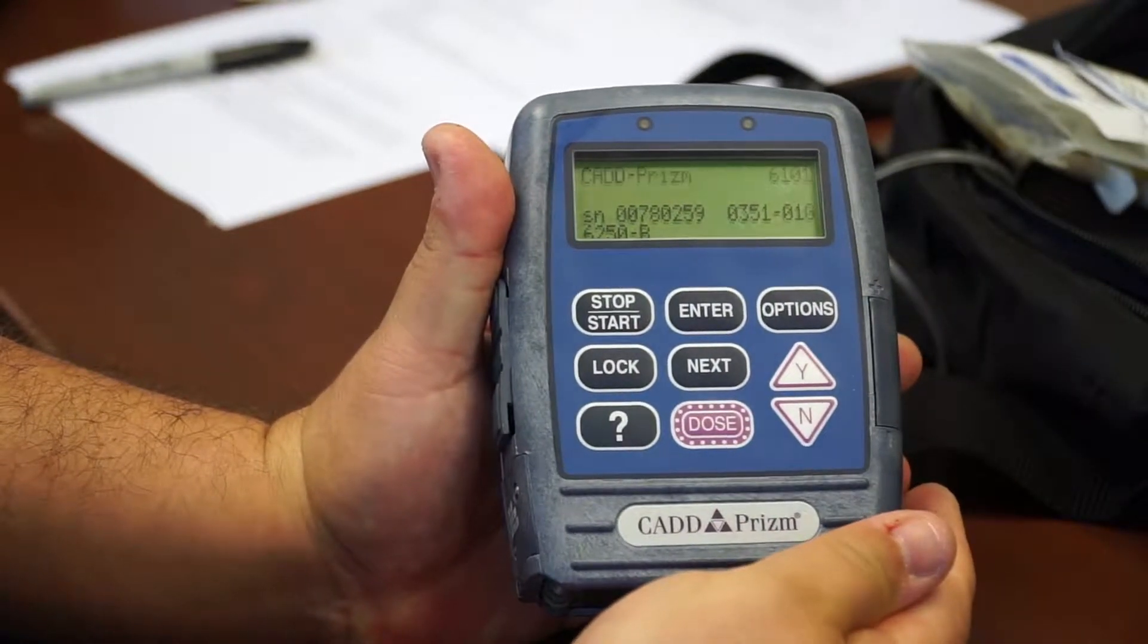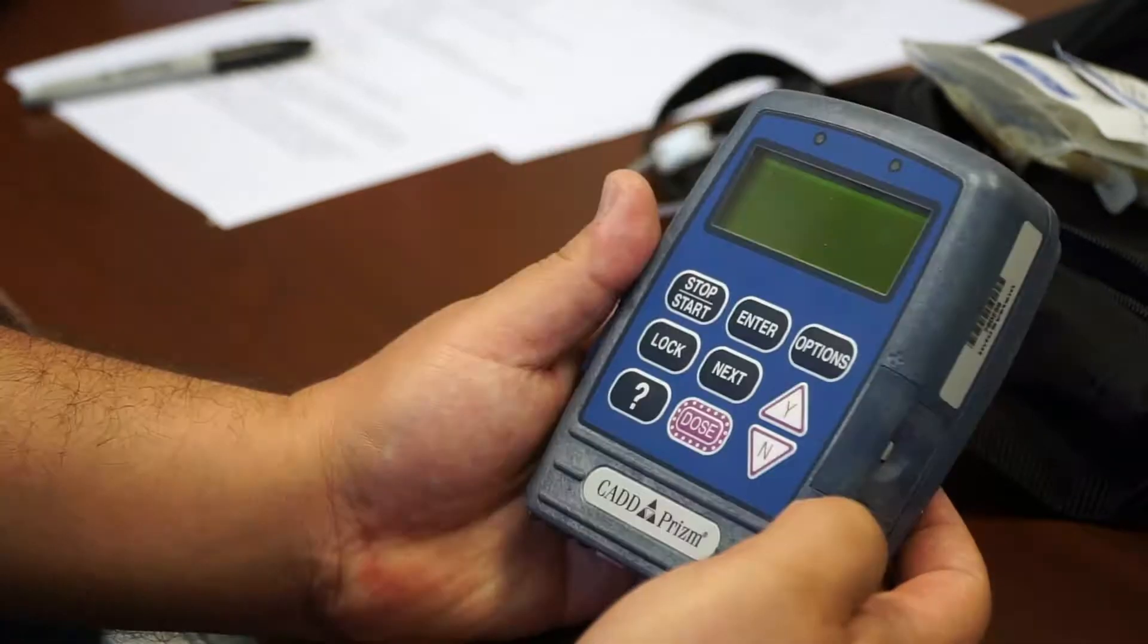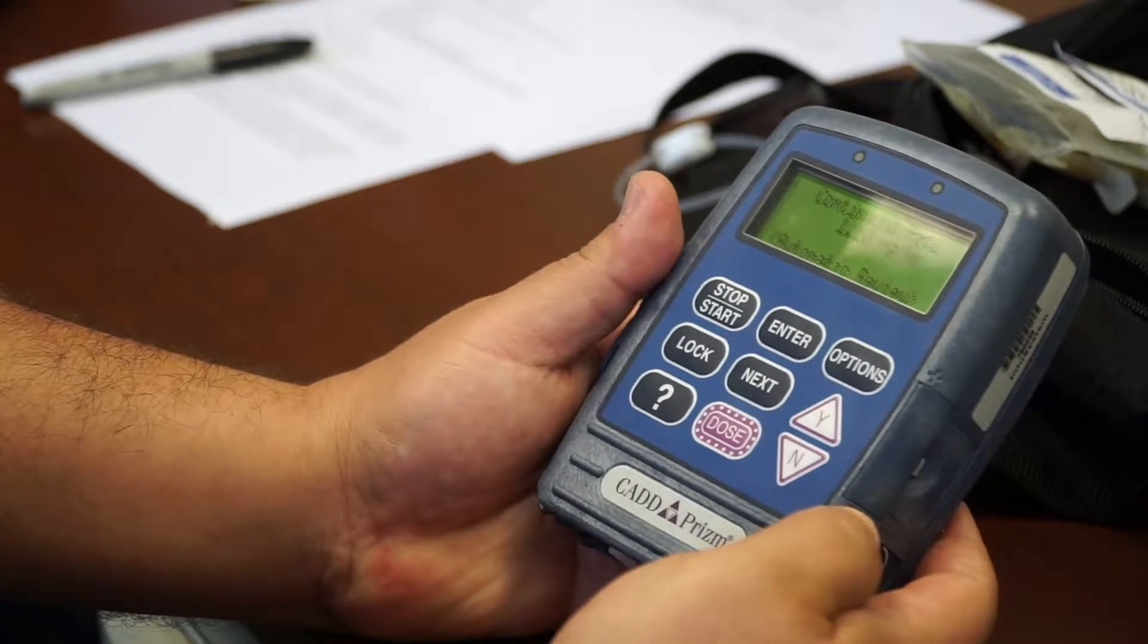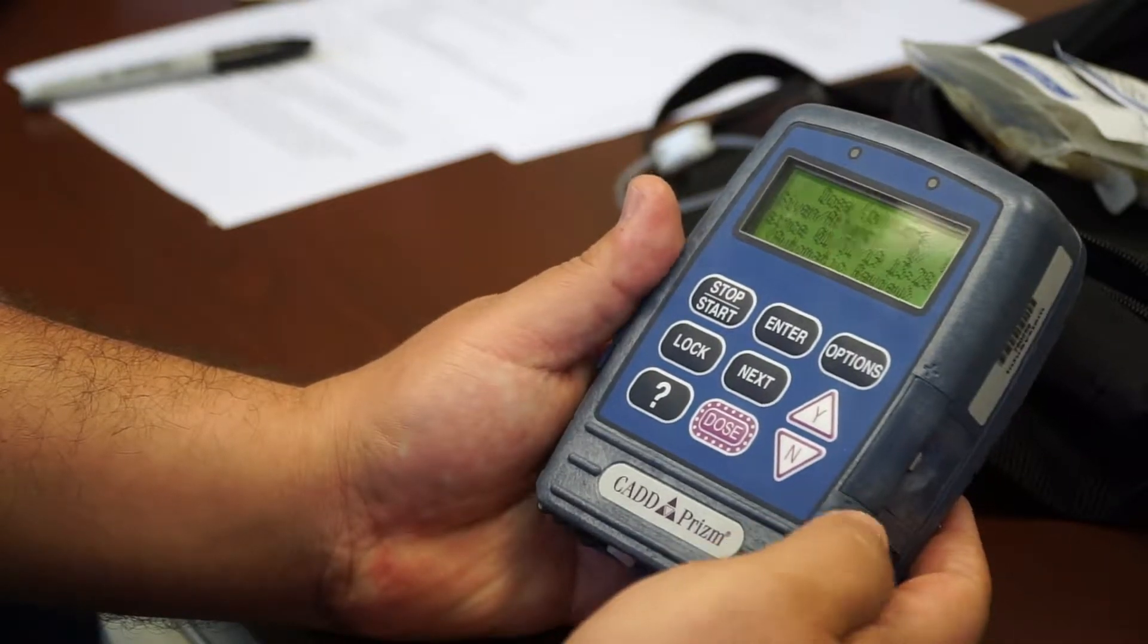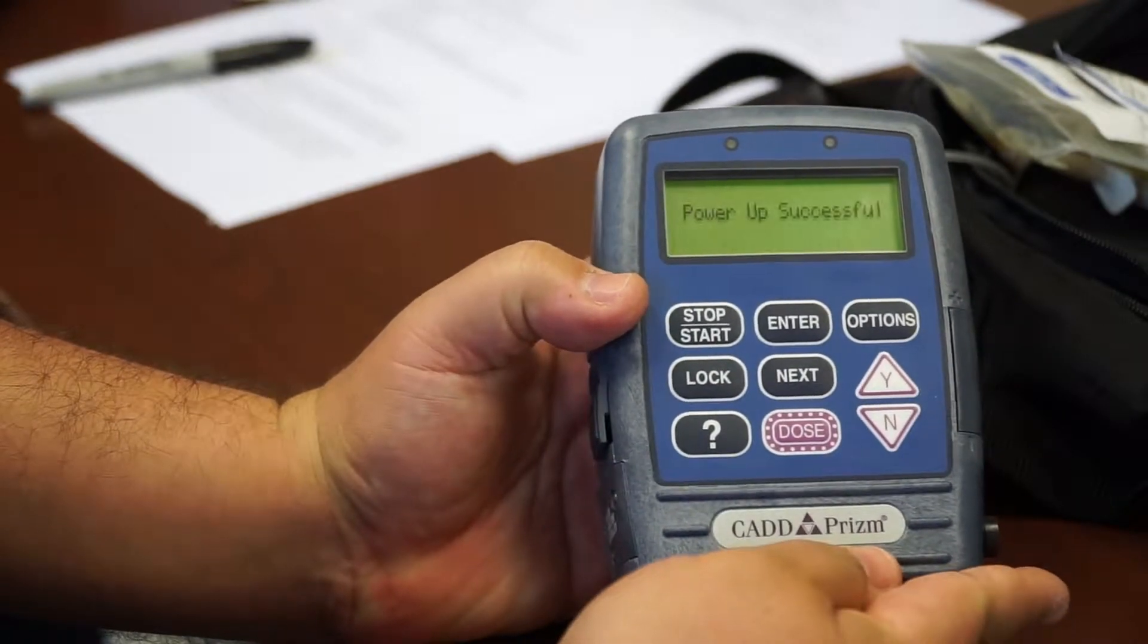And it'll turn on and go through a power up procedure. It'll beep loudly when it's done, just like that.